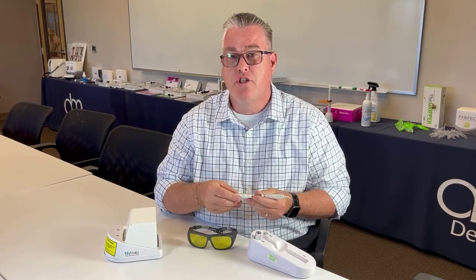With the Envy Laser, we're going to talk about battery life. You will receive two batteries with your purchase. Each battery will last 30 minutes on continuous — so from start to finish, continuous 30 minutes. But if you're stopping and going in between procedures, it will last about 15 to 20 procedures. So while you're working, you have one charging for extended battery life.